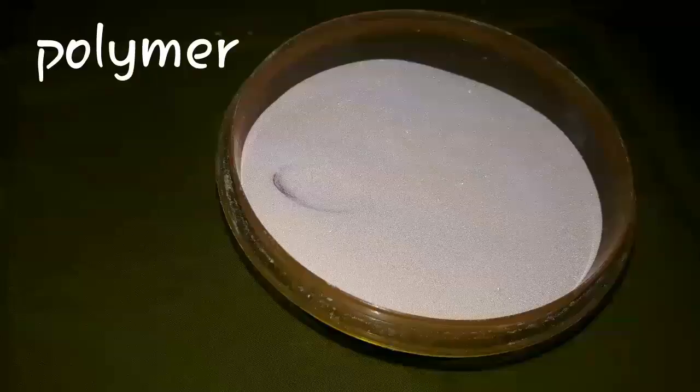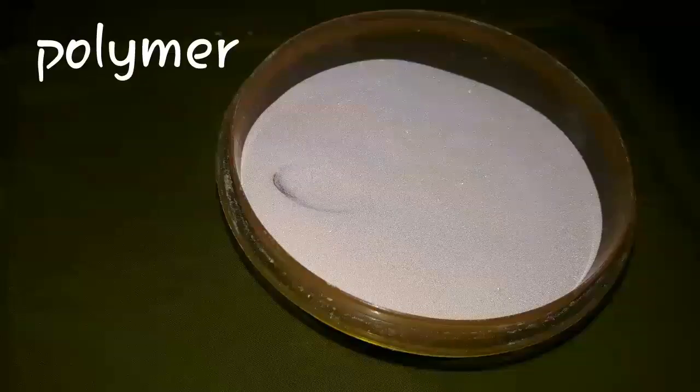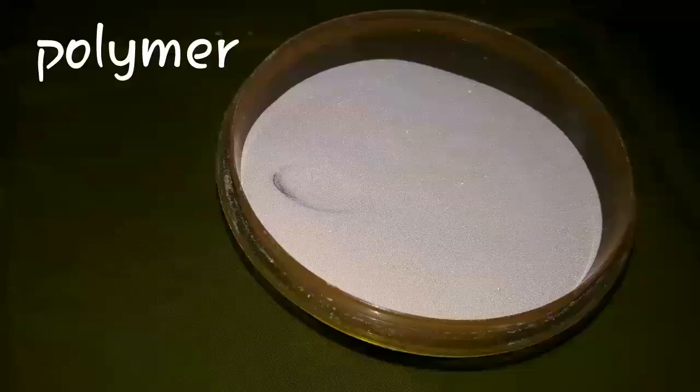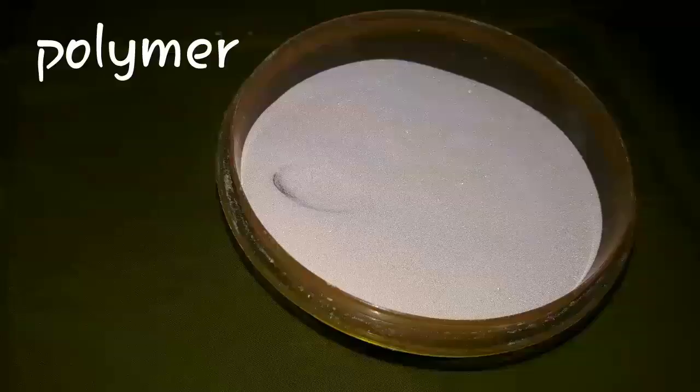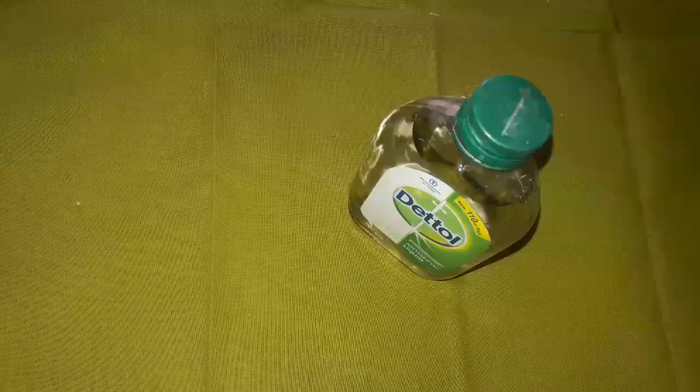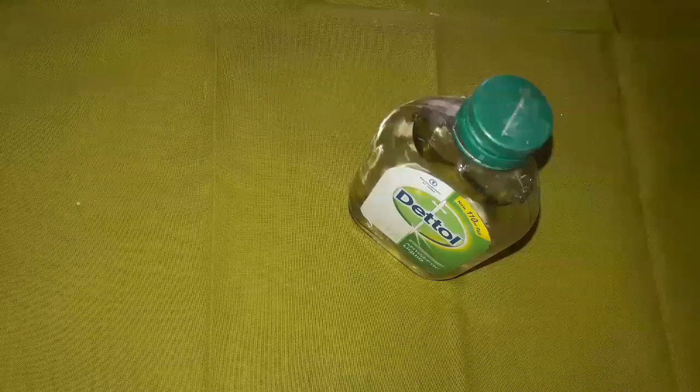This is acrylic resin, called polymethyl methacrylate resin, which is mostly used for the fabrication of complete dentures. Another type of polymer is also used for denture base fabrication. These are mostly used in the prosthodontic laboratory, and this is the monomer.